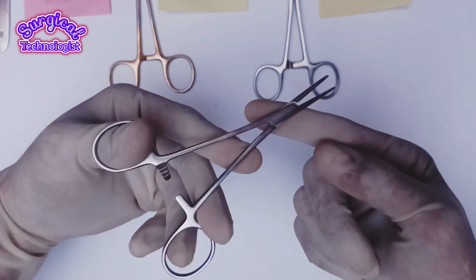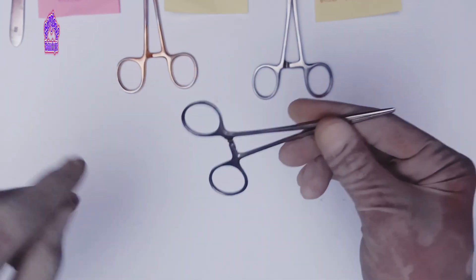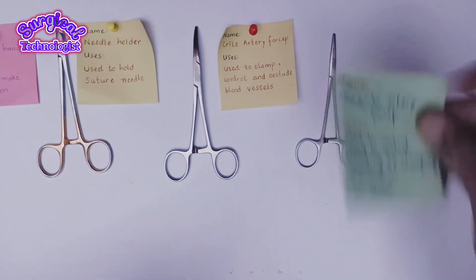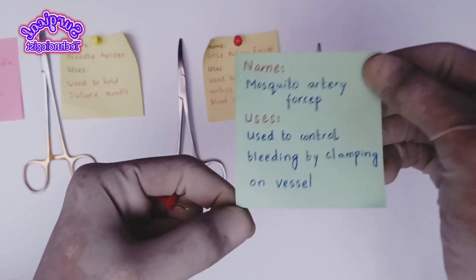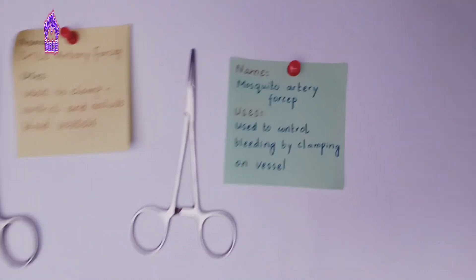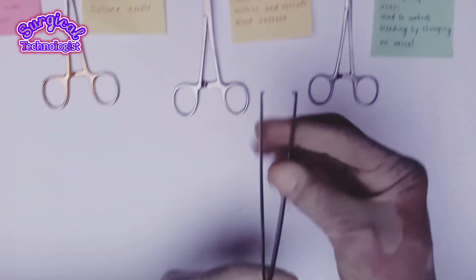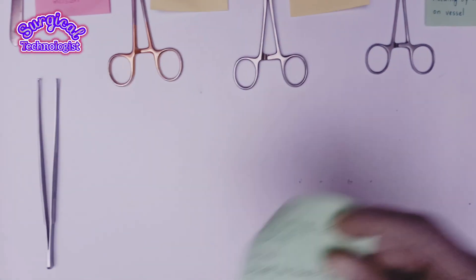Now we have the mosquito artery forceps, used to control bleeding by clamping on vessels. The next instrument is the dissecting tooth forceps, used to hold or grab tough tissue like fascia.